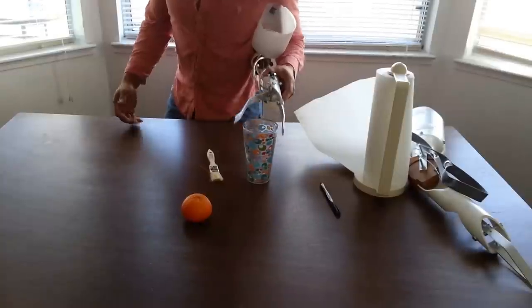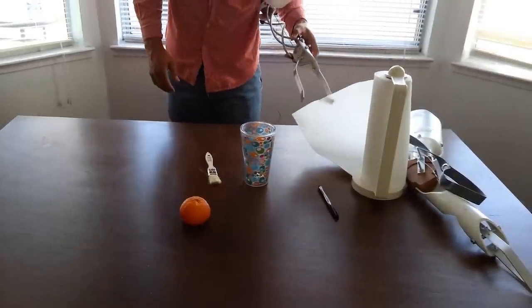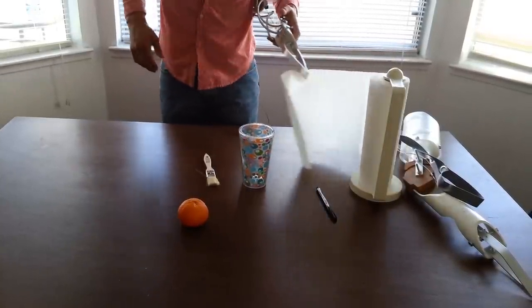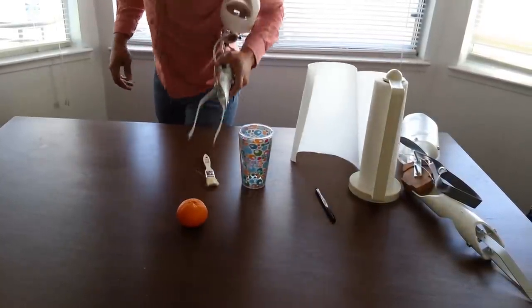So it's able to grab cups, grab small items like paper. You have no problem. Same thing. Grab some fruit.